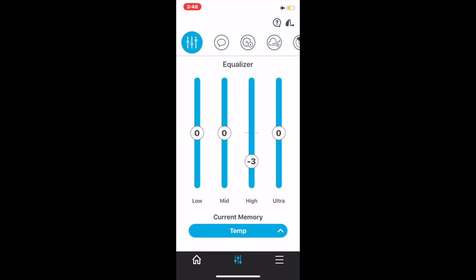So, what I have done is I have turned down the high frequencies. I am also going to turn down the ultra high frequencies. This is a nice step to do if you feel the hearing aids are too tinny or too sharp in a certain environment. You can go into the equalizer.